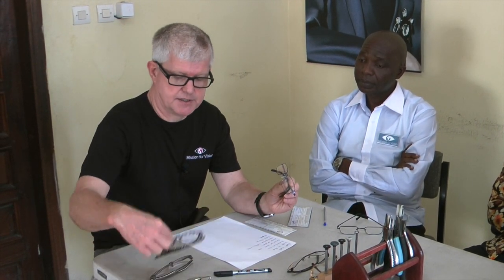Everybody is different — all our faces are different, our heads are different sizes. So it's important that when we are choosing a frame, we choose the correct frame for that person and we don't just pick up any old frame and try to make it fit. Frames come in various forms, shapes, and materials. The main materials in optics are metal and plastic, and there are advantages and disadvantages with both types.